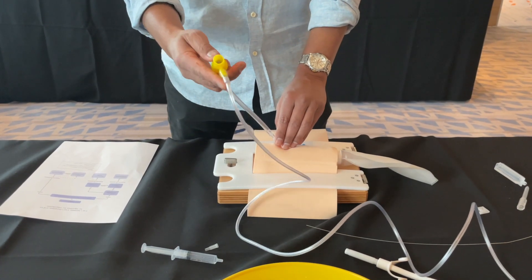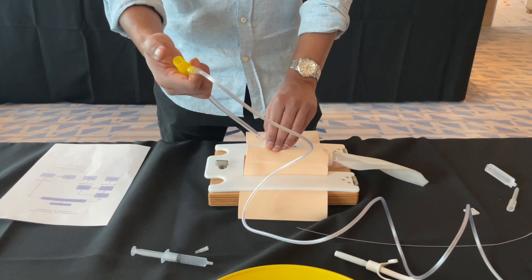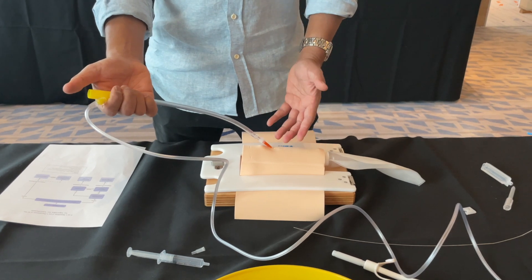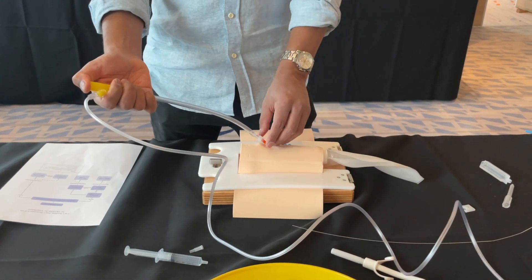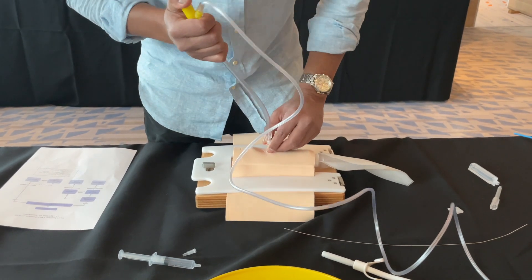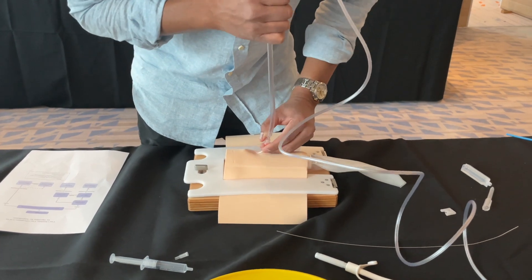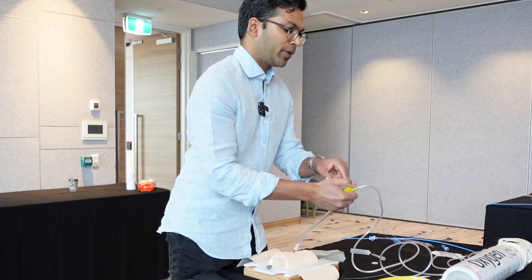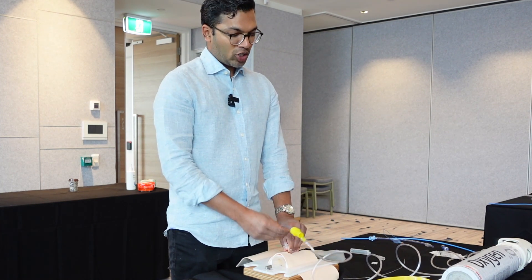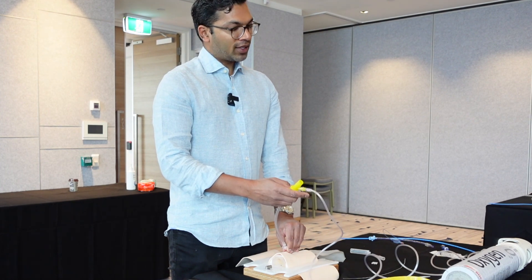This device is particularly good because it's got quite a large orifice, which gives you a lot of tactile feel. If I'm just insufflating, I'll feel not much back pressure, but as soon as there's an obstruction you can hear and feel the difference — that's unblocked, and that's blocked. You'll feel an incredible amount of back pressure, simply because the tubing and the thumb position here are quite large.